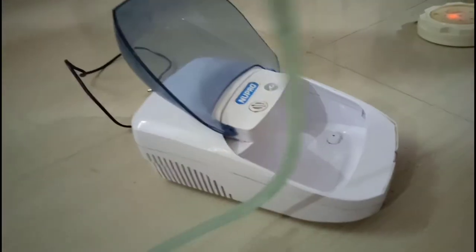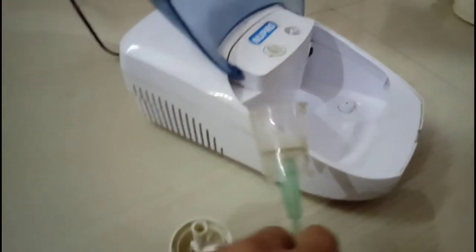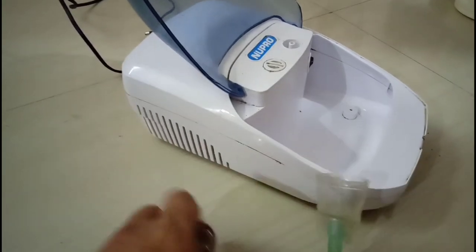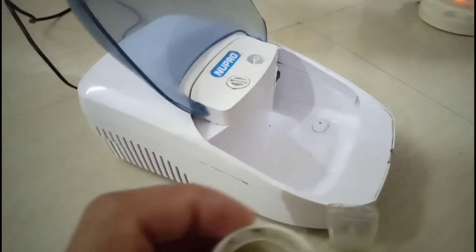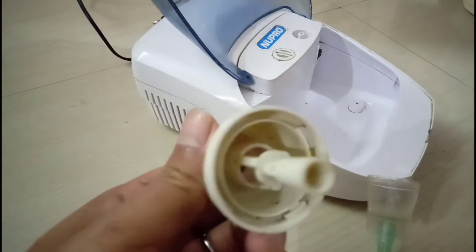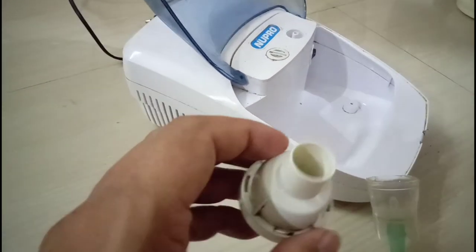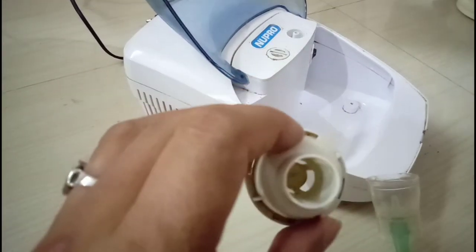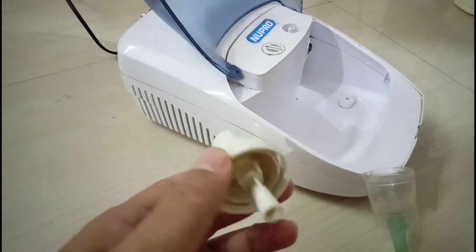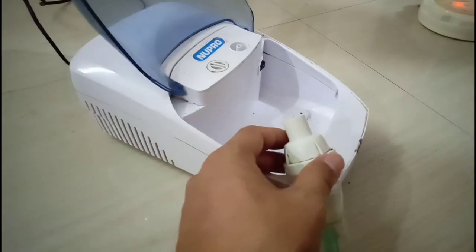This is the connector tube which will connect the medicine cup to the air compressor machine. And this is the nebulizer insert with valve cap.